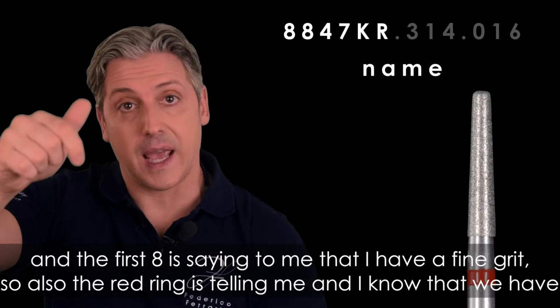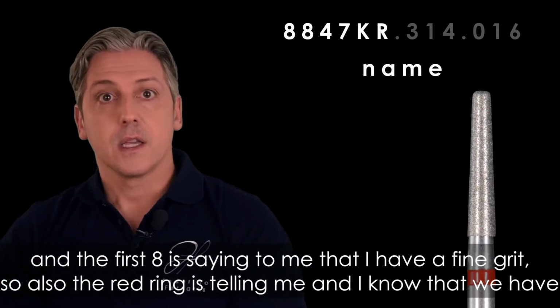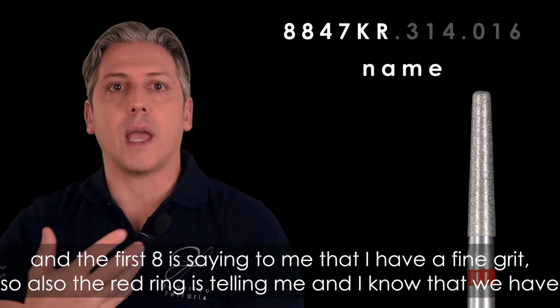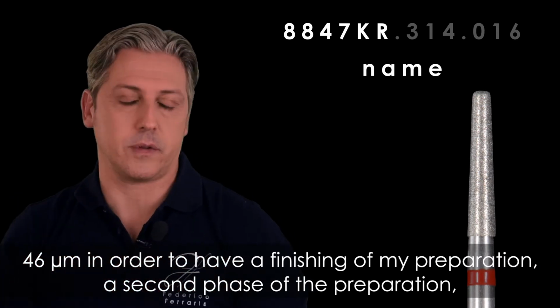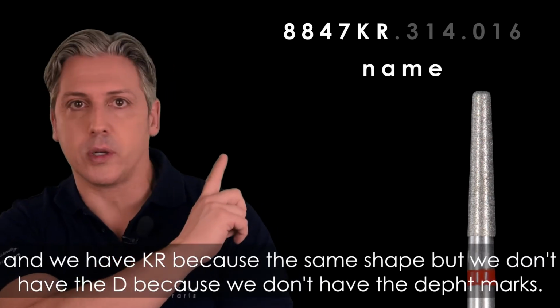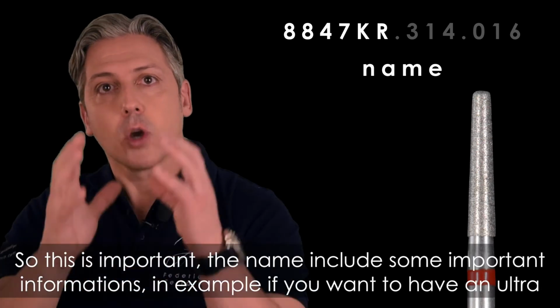And the first 8 is saying to me that I have a fine grit. The red ring is also telling me, and I know that we have 46 microns in order to have a finishing of my preparation, a second phase of the preparation. Okay? And we have KR because it's the same shape, but we don't have the D because we don't have the depth marks.